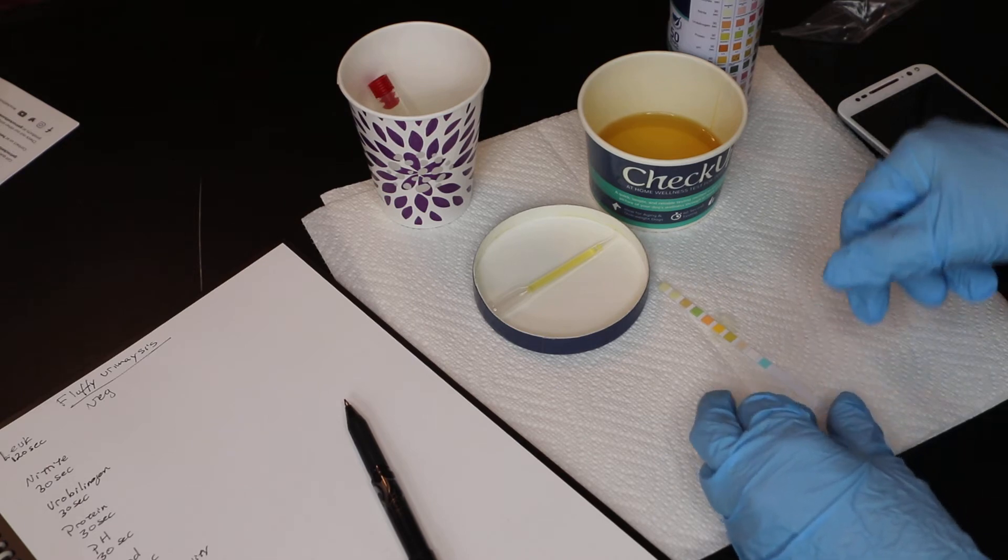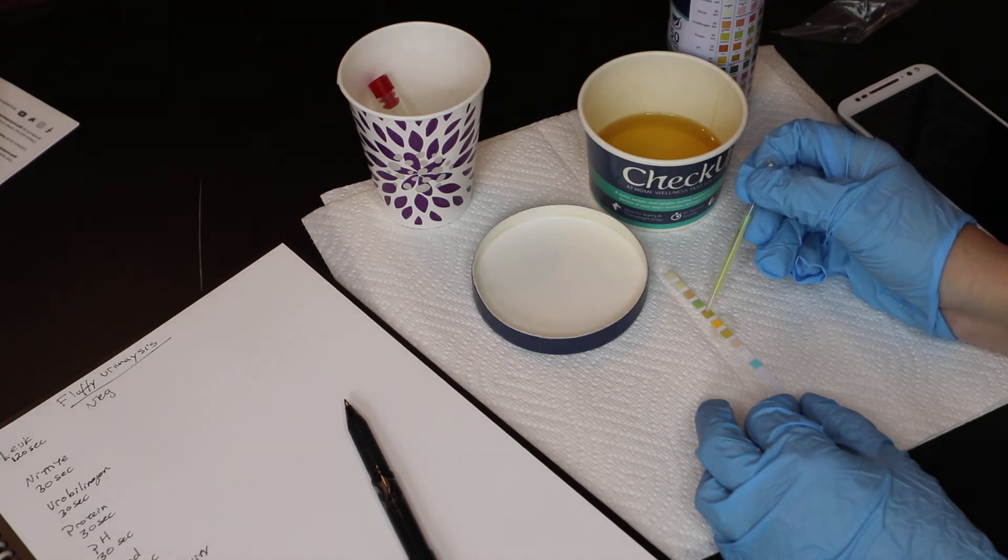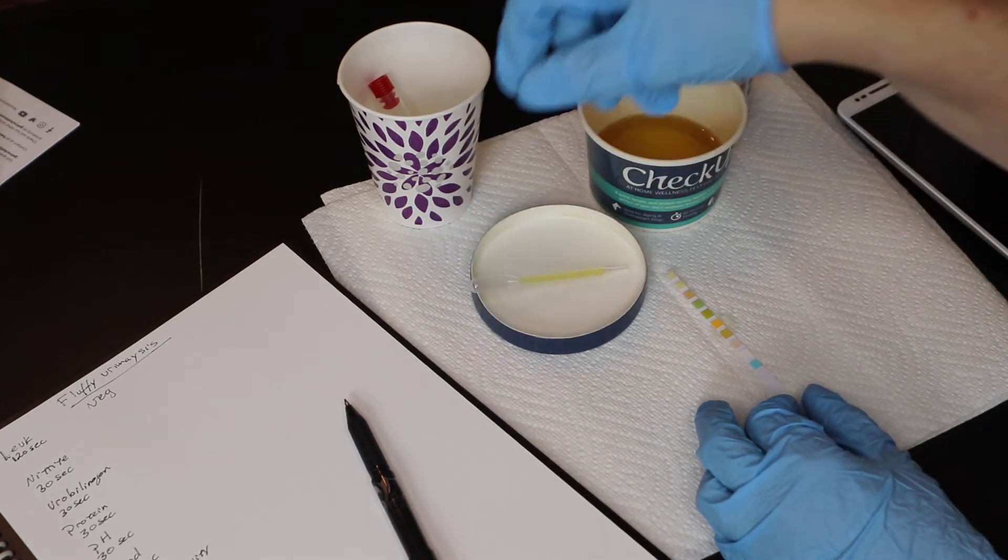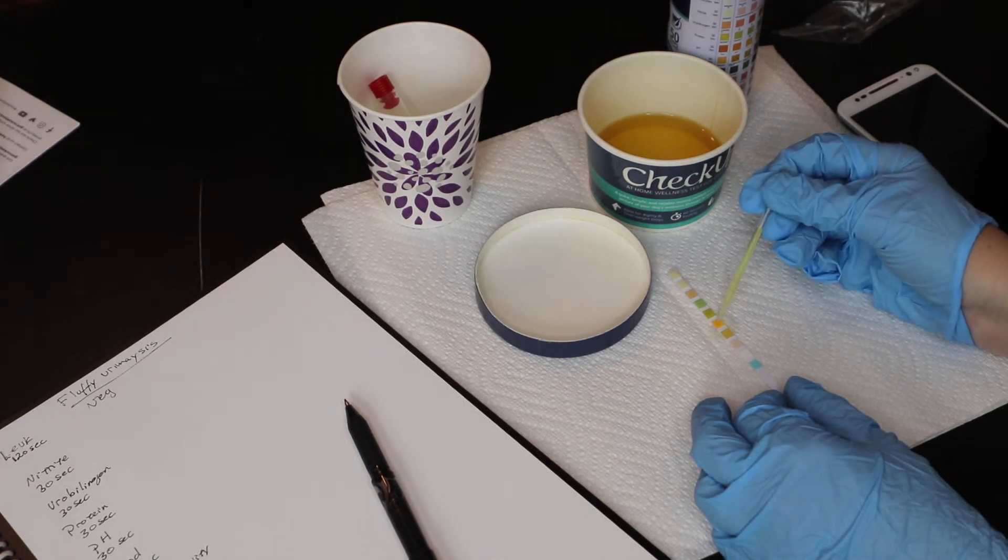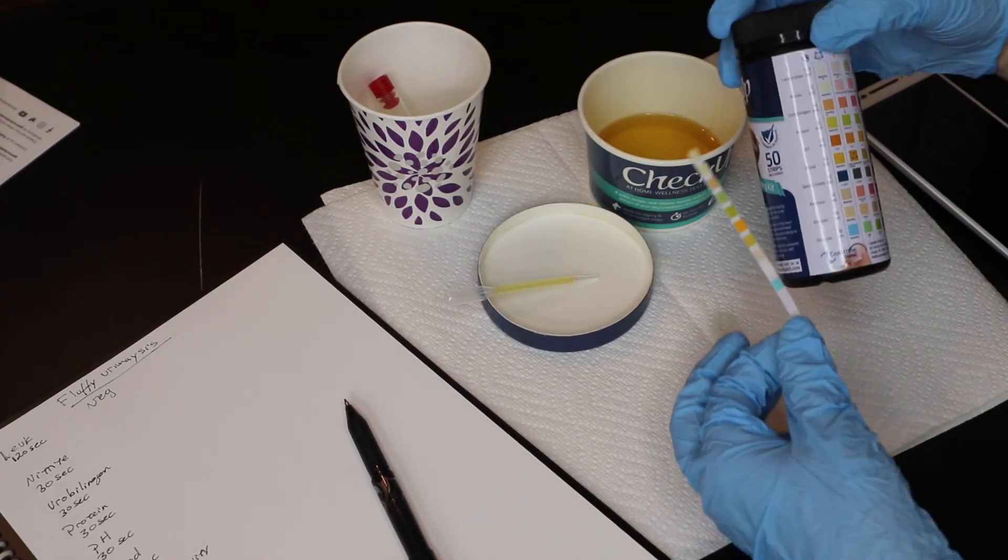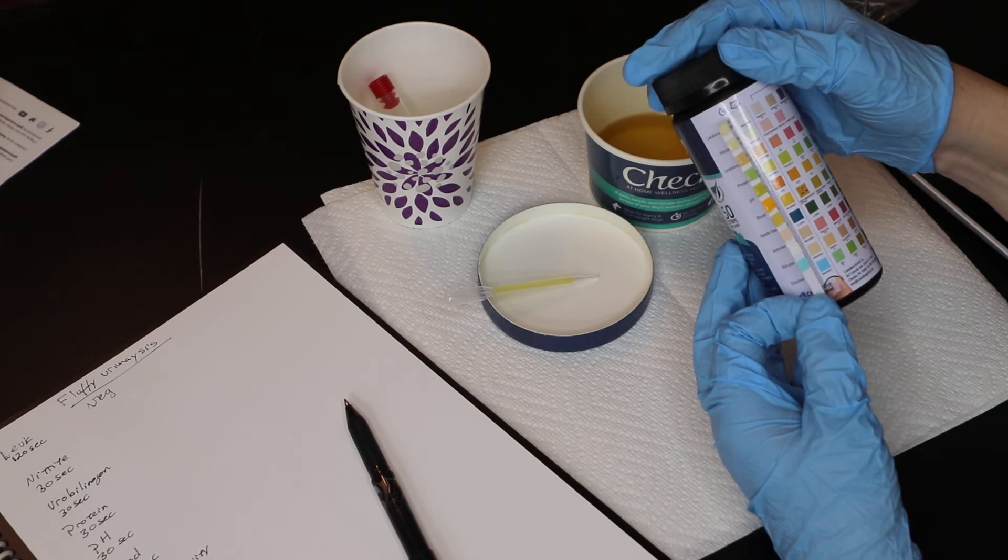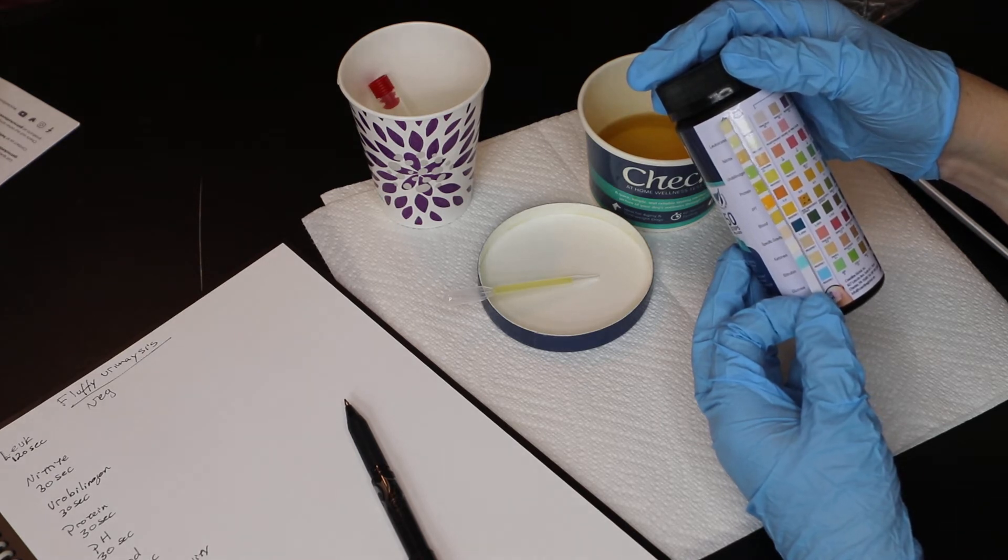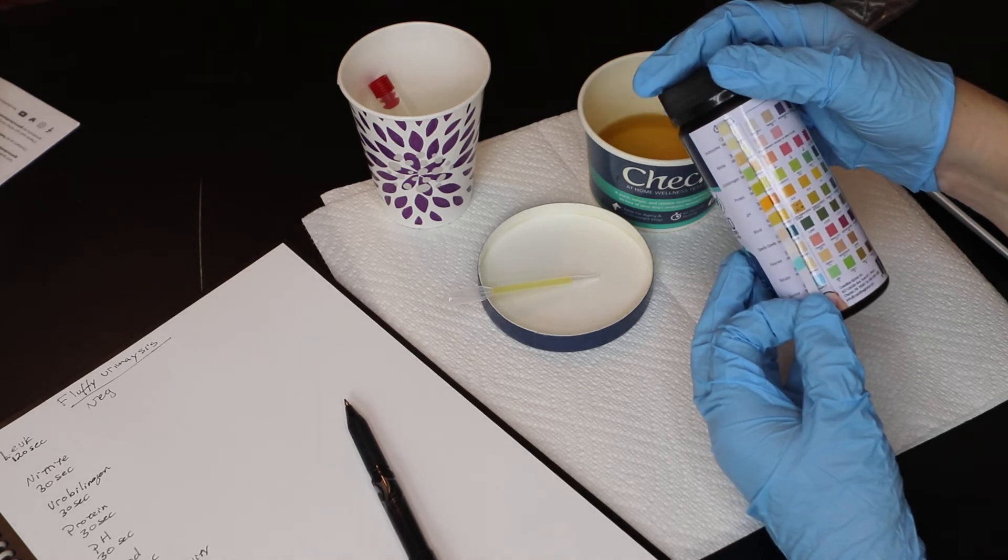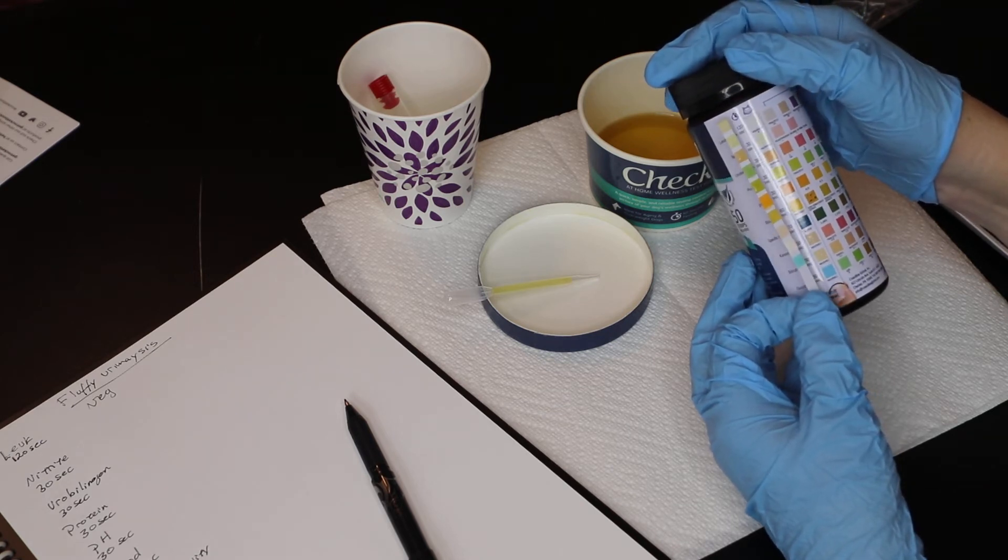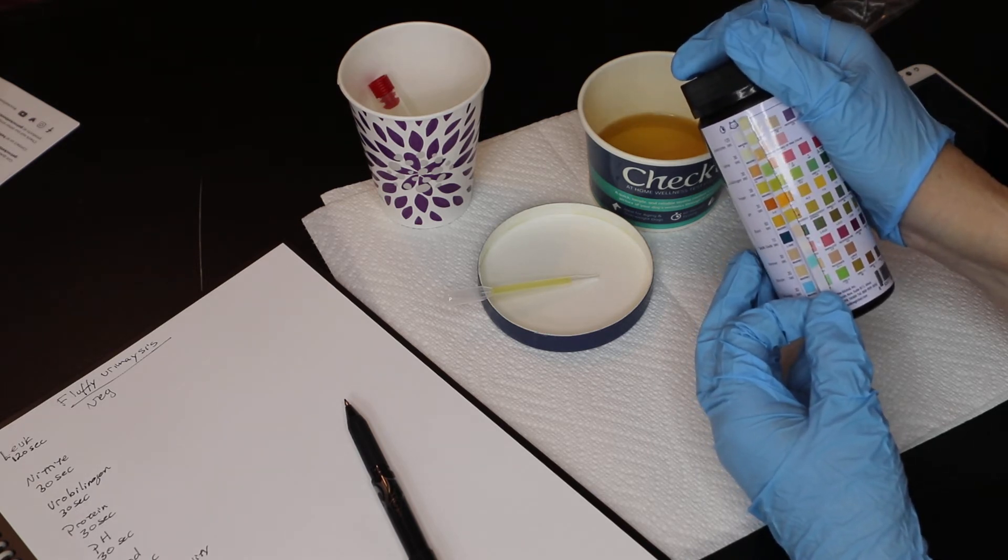Now the next one is at 60 seconds. And if you get comfortable with this, you can do these quickly. The next one is going to be the specific gravity, and that's 10 seconds. So that's the shortest one is the next pad. So actually I'm going to go ahead and do the 10 seconds. Oh, sorry. That one is protein and pH. We've got those lined up right. So you can see where even veterinarians mess up. And that's the pH. And that one is around 6, not quite 6.5.